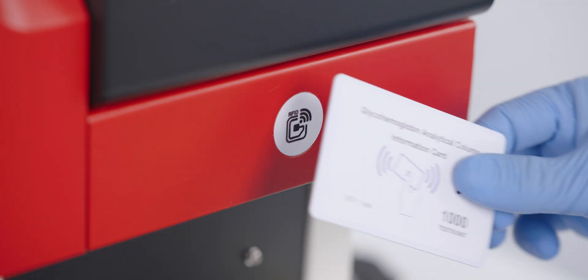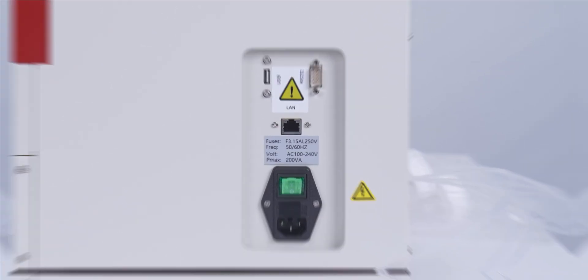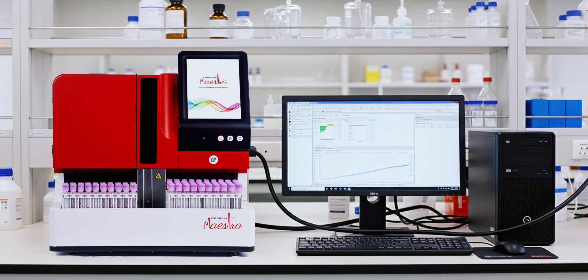With smart features like RFID-enabled consumables and seamless HIS/LIS connectivity, the Maestro makes every step more efficient and secure.